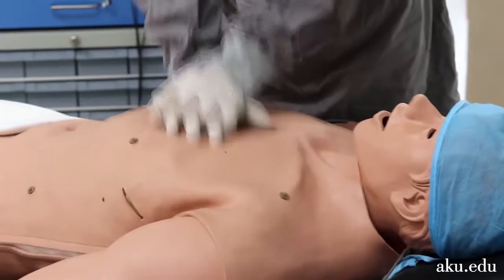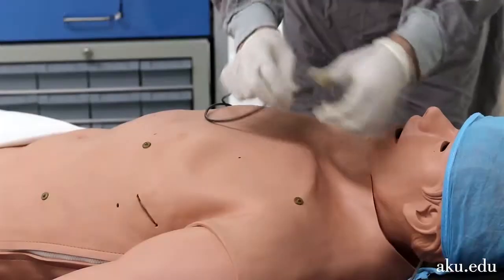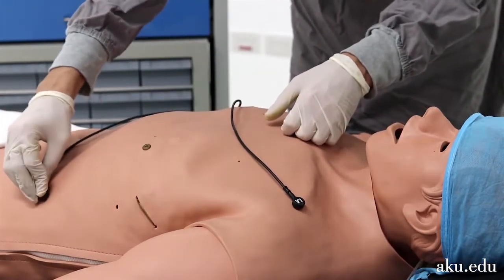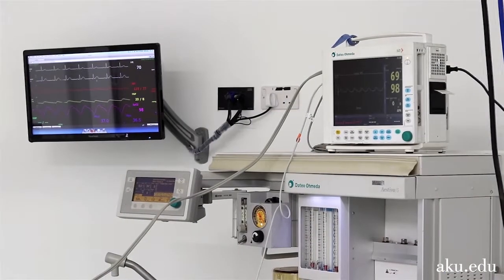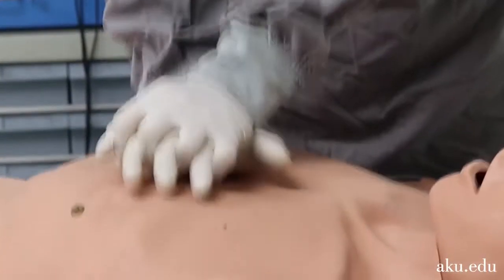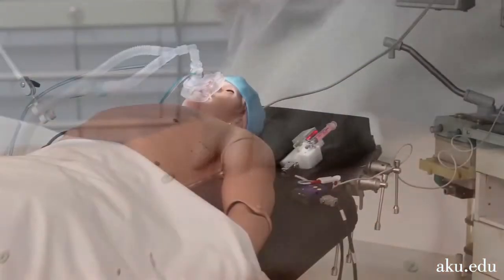We can perform real-time cardioversion on the HPS by using a real defibrillator. One can view the real-time ECG on the external monitor. The simulator allows the insertion of a pulmonary artery catheter, displaying on a patient monitor with appropriate waveforms. It has quality CPR monitoring that can detect hand placement, depth, and rate of compressions.